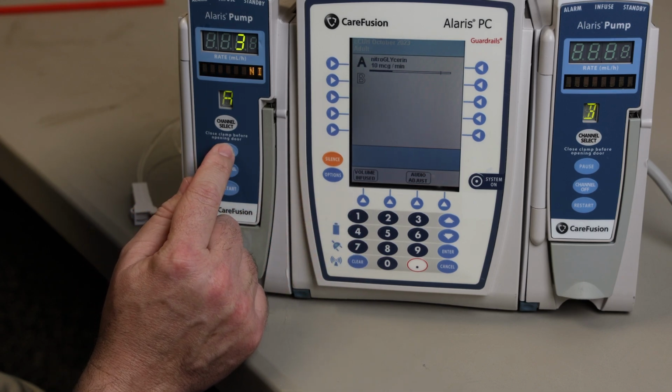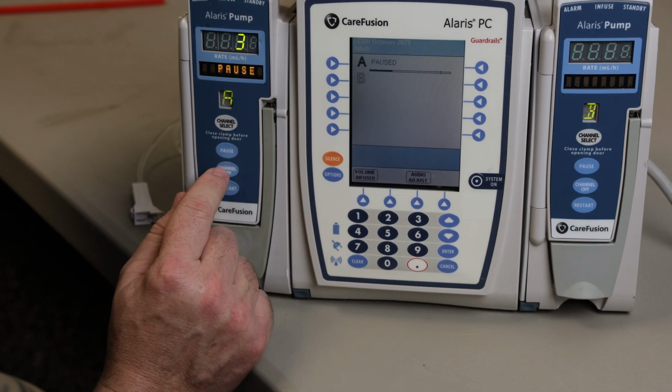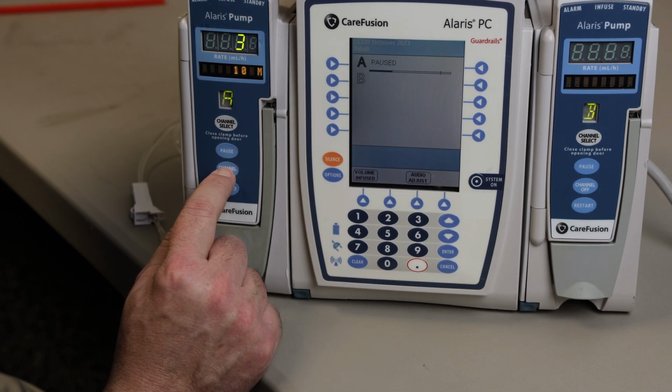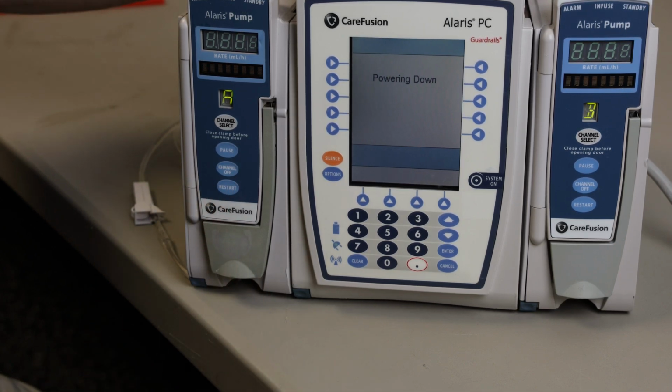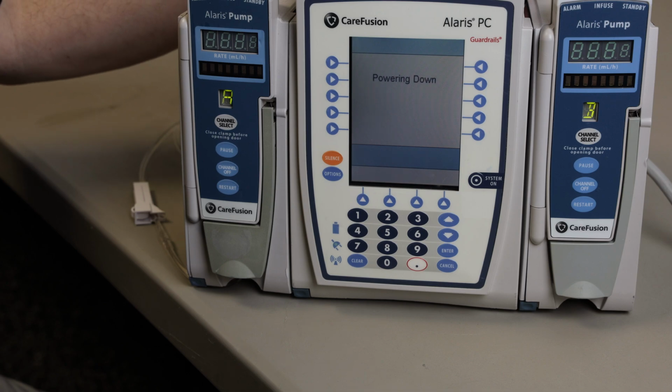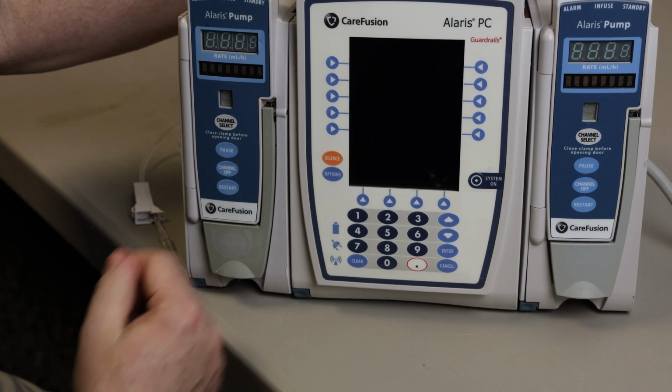Now if you need to go in and change your medication, then you would hit channel and actually go in. It'll pull back up what your actual dosing is, and you would then go in and modify your nitroglycerin drip up or down, however you need to do. Obviously you would hit start.